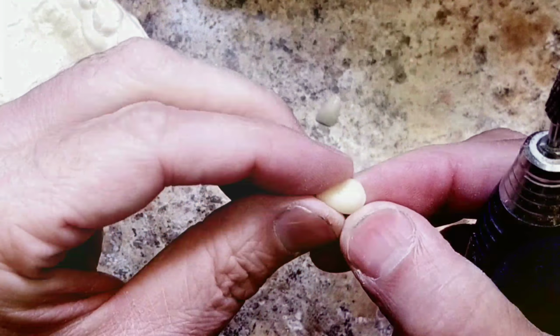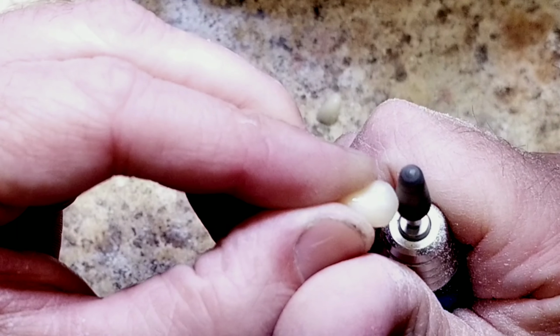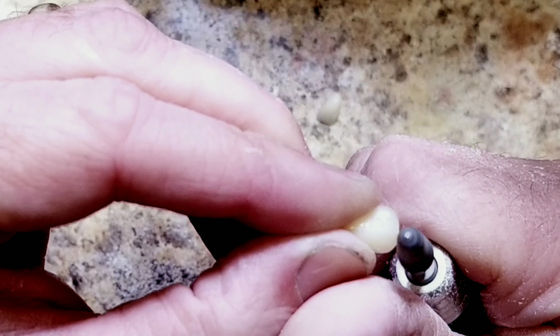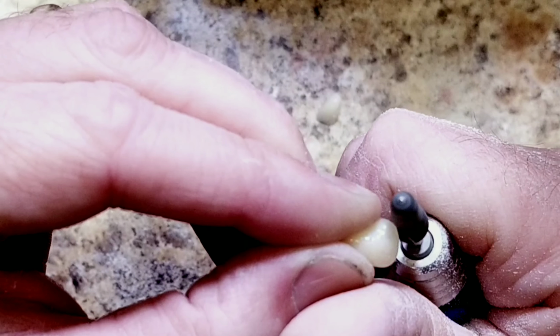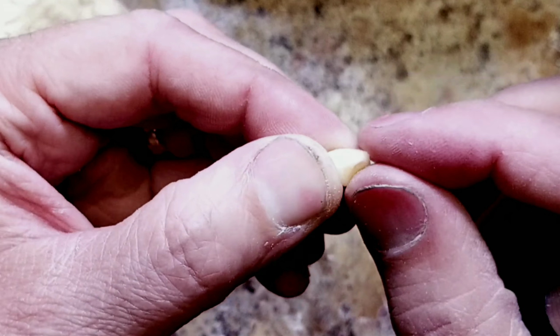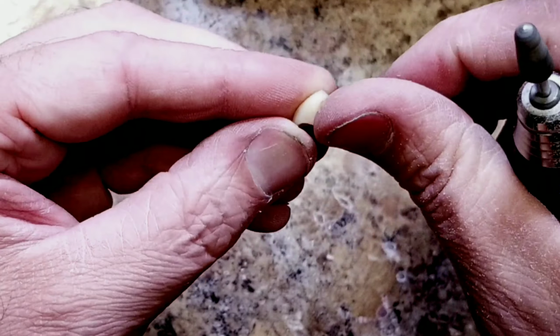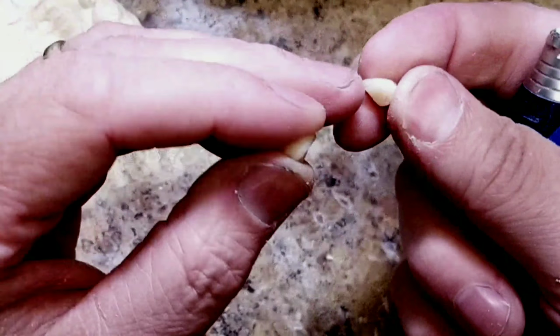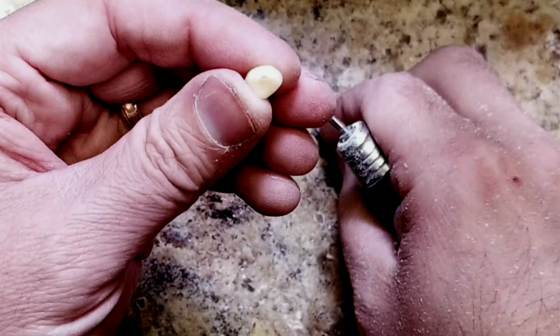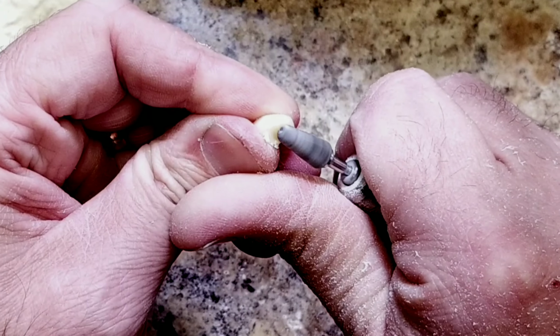First thing you want to do is take off the point of the canine, because laterals do not have a point, they're flat. Also, what we can do is get some bulk reduction really fast. As you know, a lateral is very thin, while a canine is very thick on the back portion of the side.